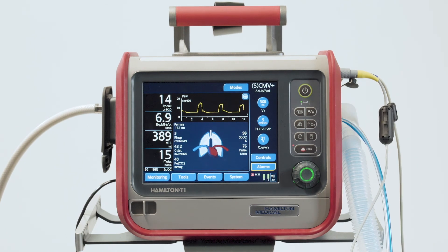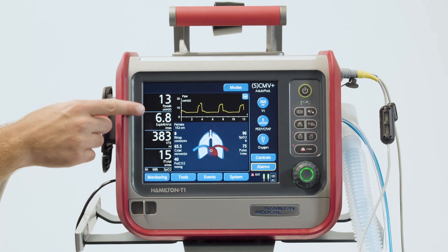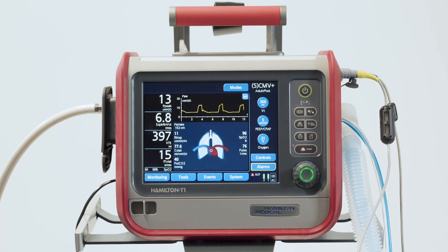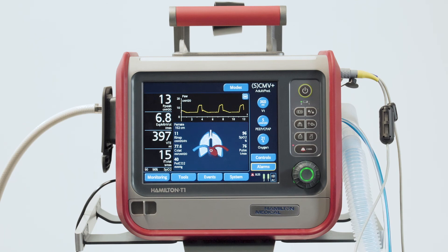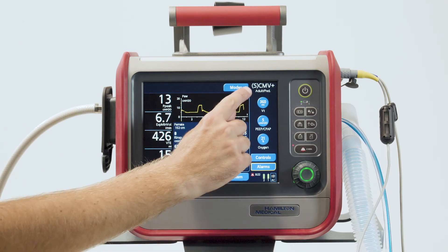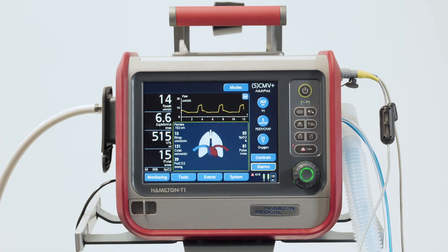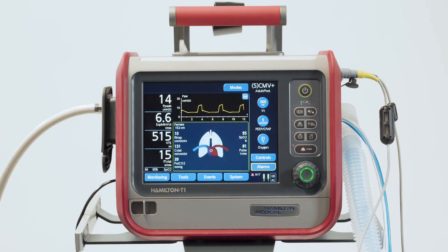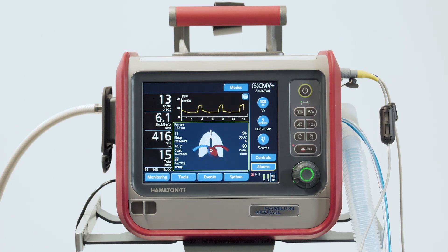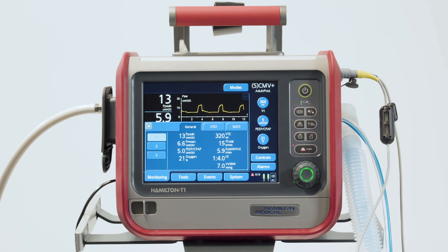On the left, you can see some numerical patient data. These are the four main monitoring parameters, also known as MMPs. Just above the main controls, you'll find the ventilation mode currently selected, as well as the chosen patient group. To access all other monitoring data, including CO2 and SpO2 values, if enabled, open the monitoring window.